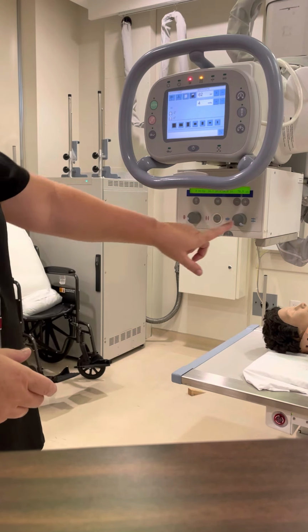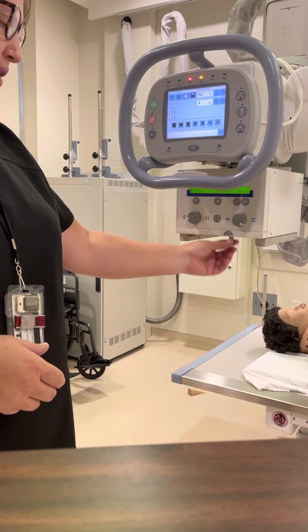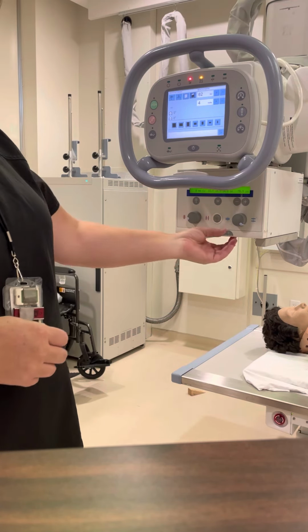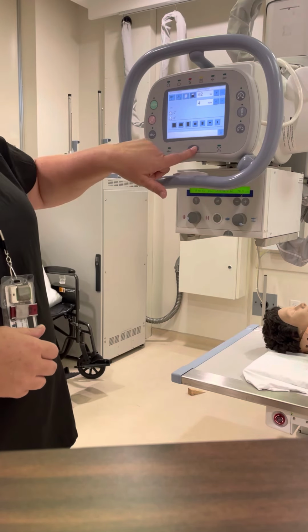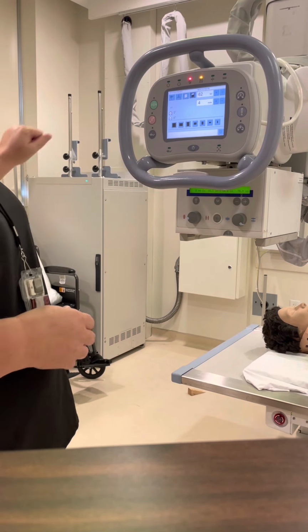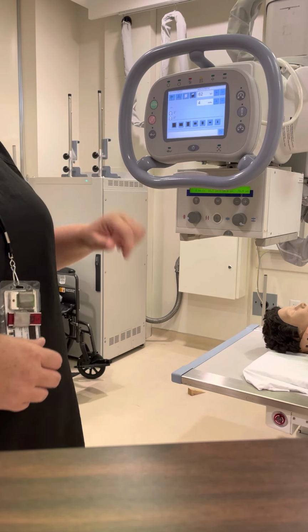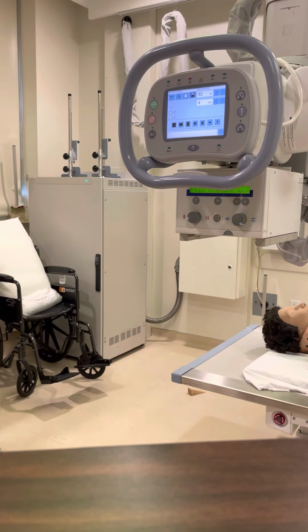So length times width. We also have a tape measure here on the front. So if we're measuring to the tabletop, measuring to our IR, or measuring to our patient, you can see the little indicator here on the front that tells you where it's at. Just reach in there and pull it in order to get it where it needs to be. This here turns on our light and turns off our light. So if we're going to pull our tube across our patient, you always want to turn the light off so we're not shining a light directly in their face. Okay, so that is all about the tube.